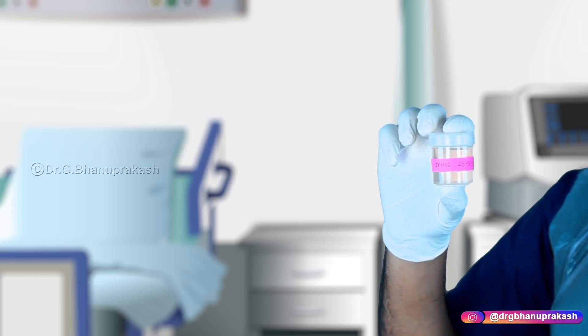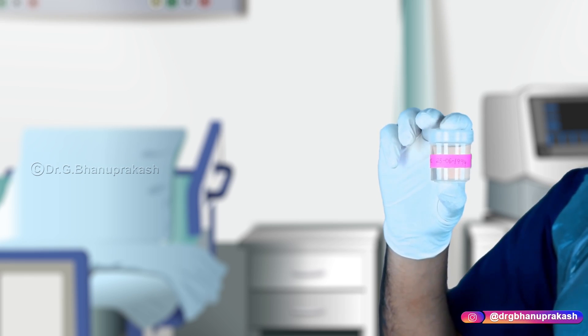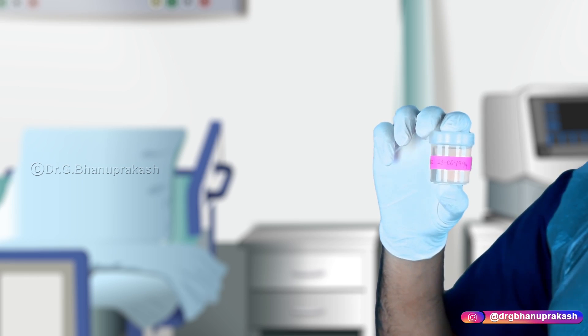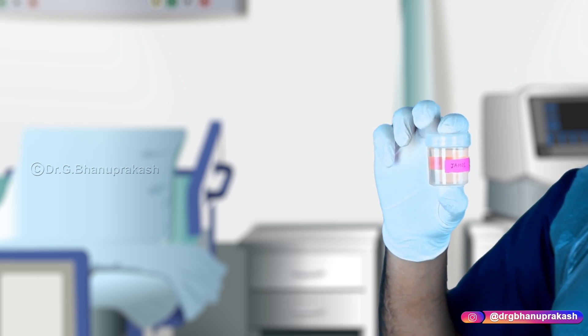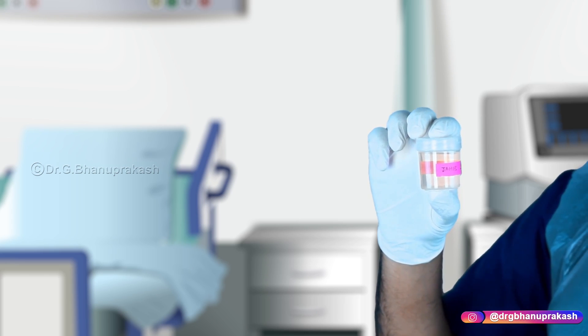After taking the urine sample, first of all confirm the patient's name and date of birth — these are most important. Check twice for the name as well as the date of birth.